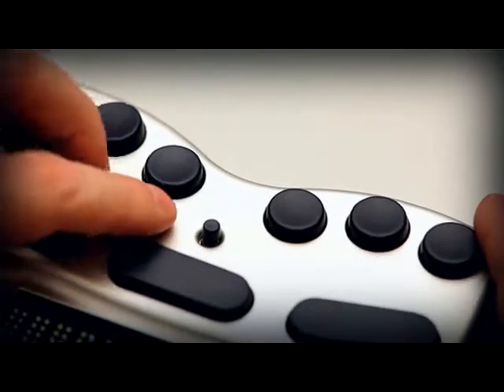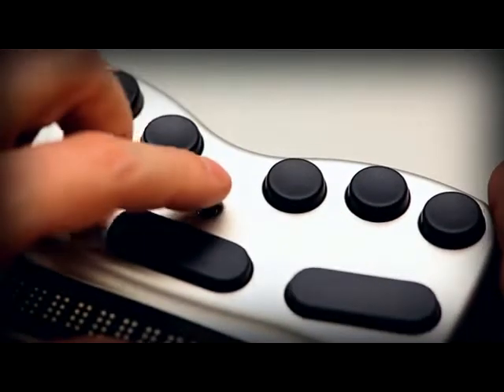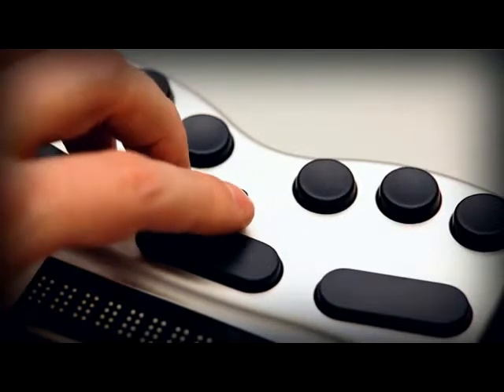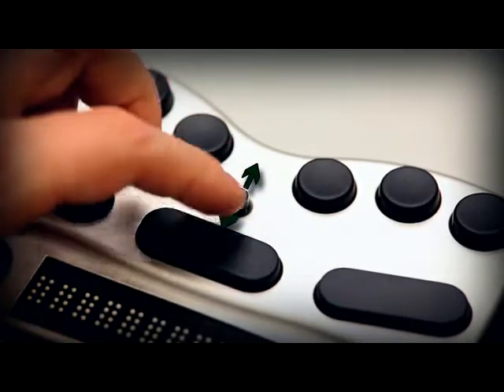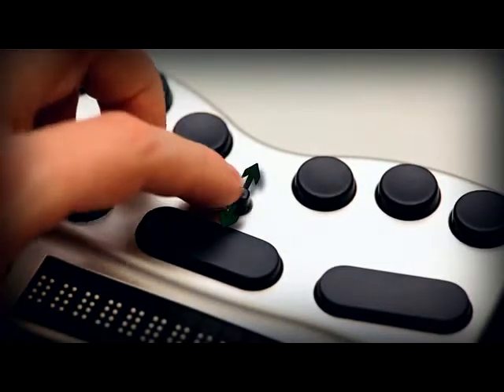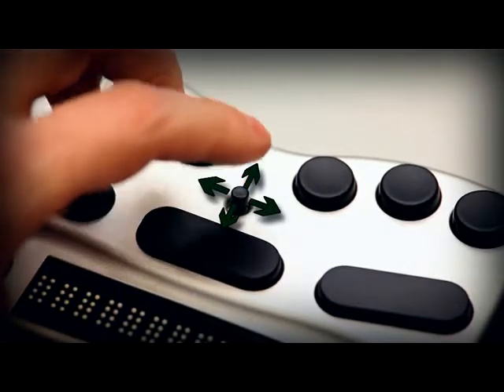In the centre, just below the Braille keys, you find the joystick. It moves in five directions. Up towards the Braille keys, down towards you, left, right and straight down.